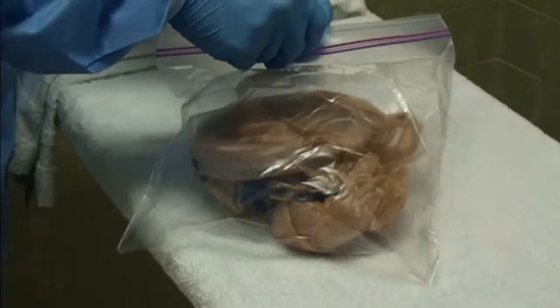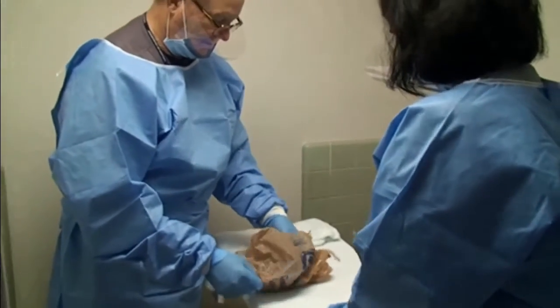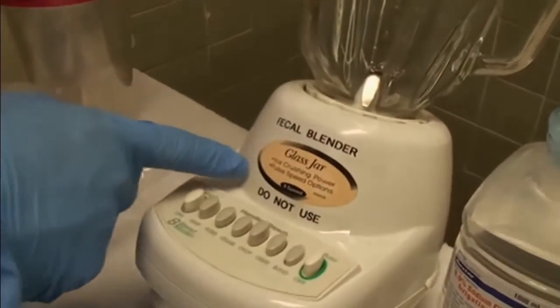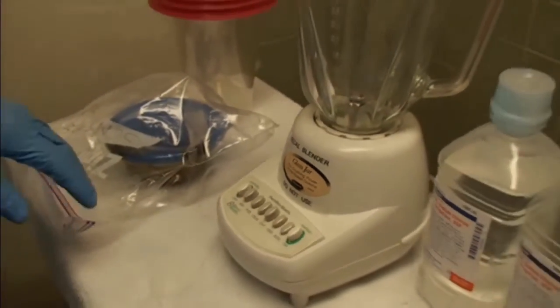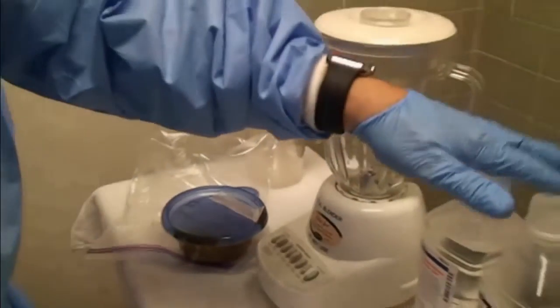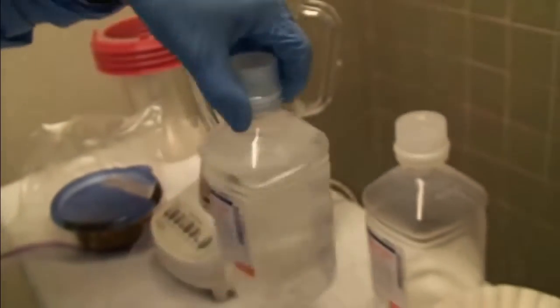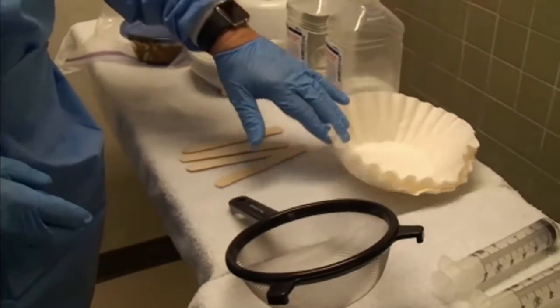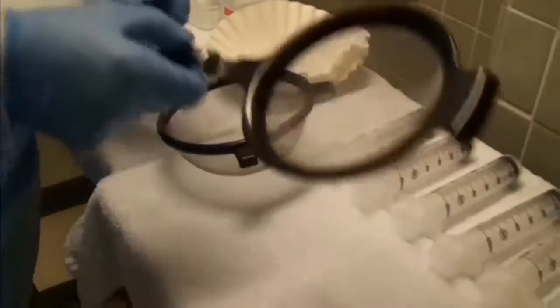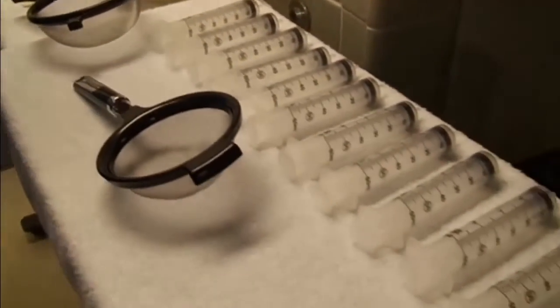Here we are opening a ziploc bag delivered by the donor. Inside is a sealable plastic container that has the actual stool specimen. The donor has sterilized this container at home with alcohol prior to its use. The equipment needed includes a dedicated blender — a simple kitchen blender will do. We are removing the donor stool that is still sealed in the container. We have normal saline which will be used as a diluent; make sure that it has no added antimicrobial agents. We have spatulas that are used in stirring. Some institutions use coffee filters as a final straining; we use colanders for filtering — one coarse colander and one that is a finer mesh. Here are ten syringes that will be used to collect the final specimen.